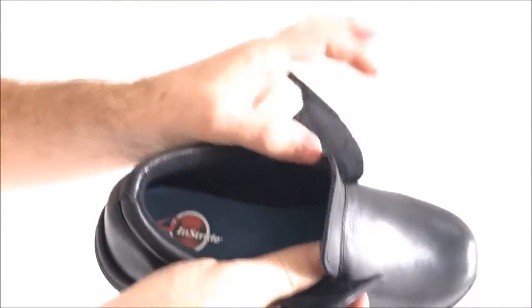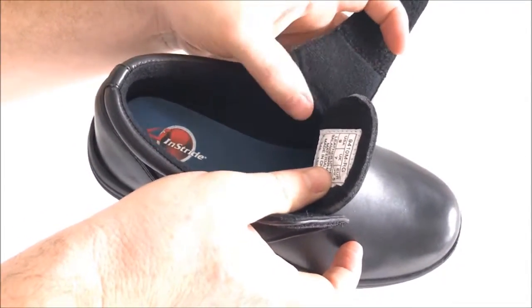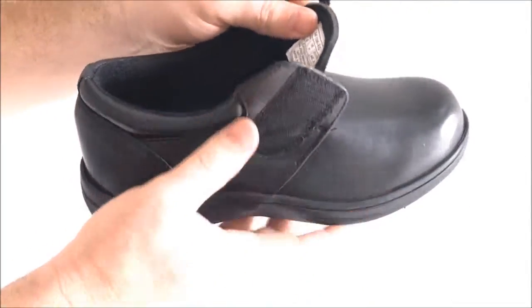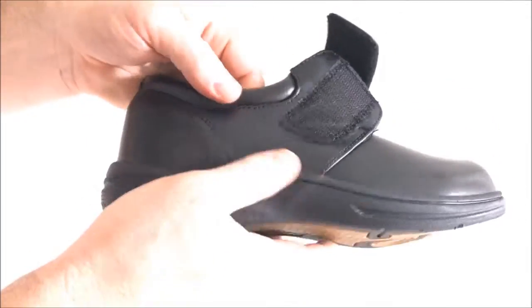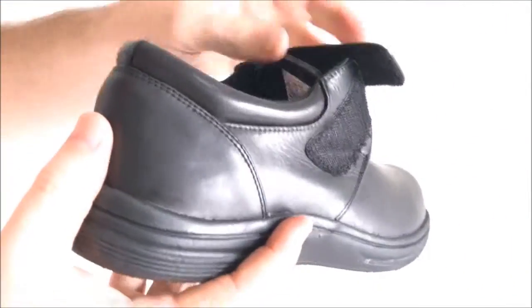The linings on the internals of the shoe are seamless Sorbotec linings with an antimicrobial shield. The seamless linings help to prevent any irritation from the stitching in the inside of the shoe, which makes it perfect for diabetic, hard to fit feet, or feet that are at risk of infection.